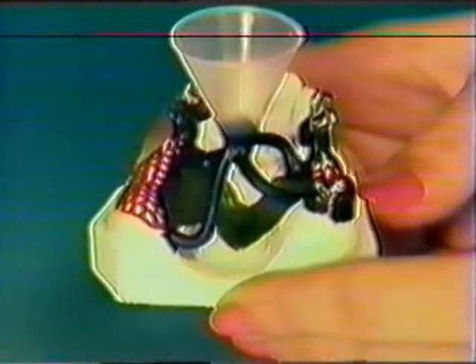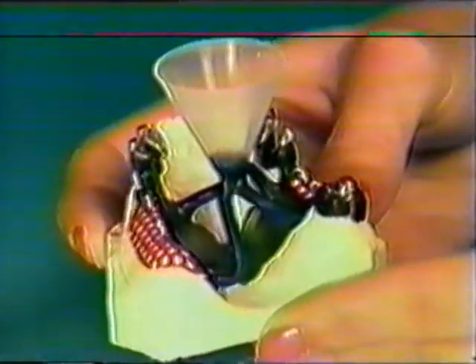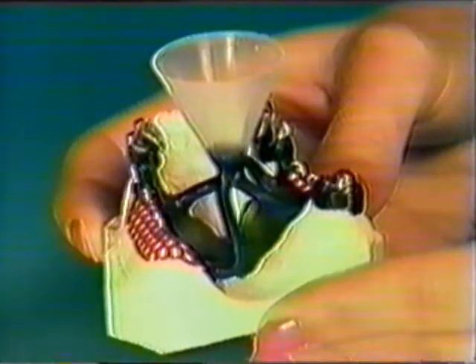Positioning of the sprues onto the wax framework is also vitally important to success. The 3.5mm wax sprues must be placed at least 10mm away from the primary crowns. Placing the sprues too close increases the possibility that the melt might fuse onto the primary parts.